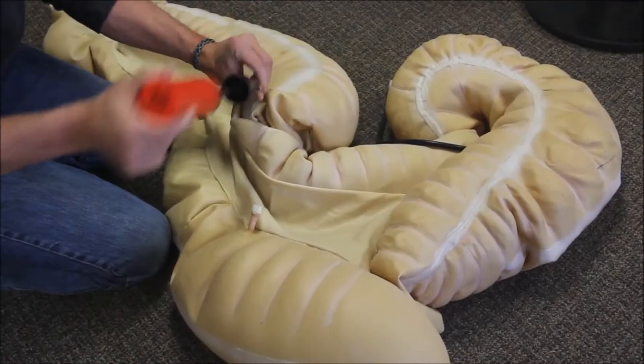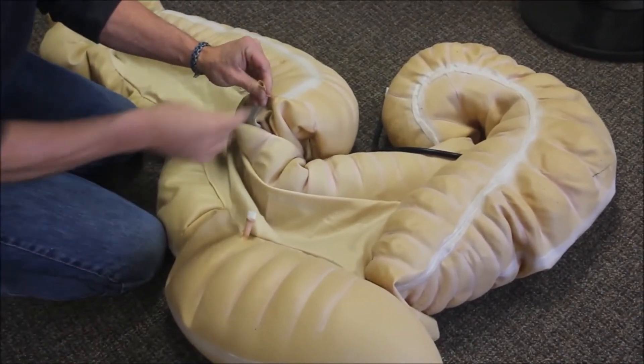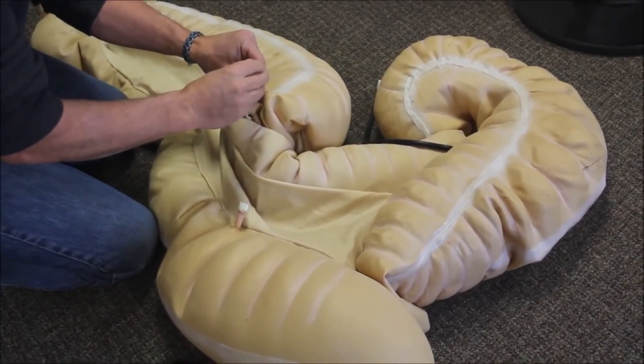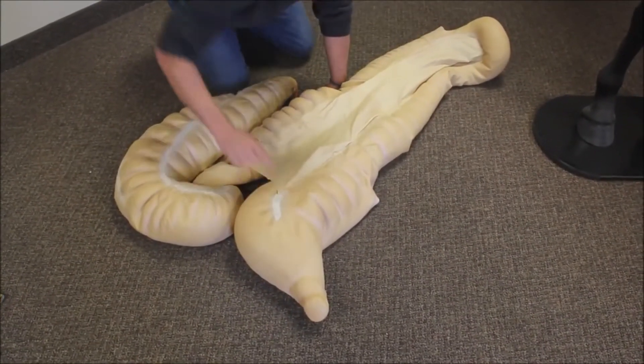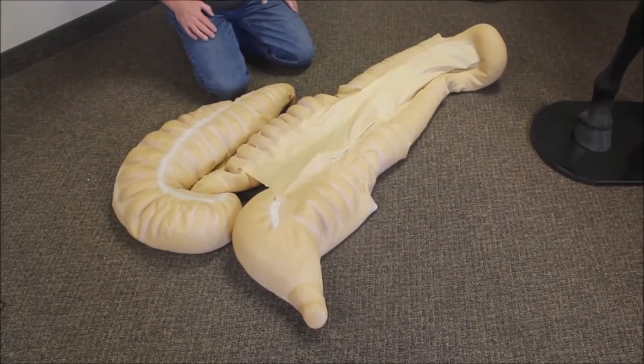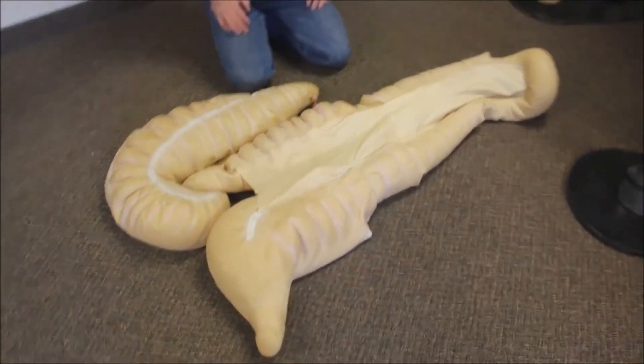The equine GI tract is an inflatable latex unit. Care must be taken not to over-inflate any of the five compartments. The transverse colon connects here. This is the cecum and here is the pelvic flexure.